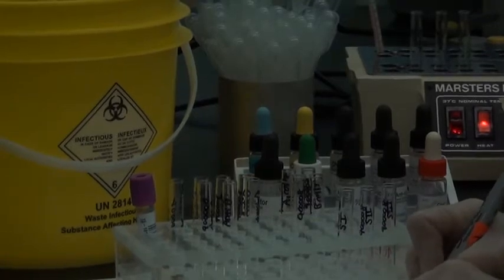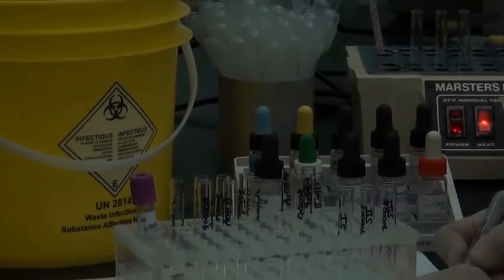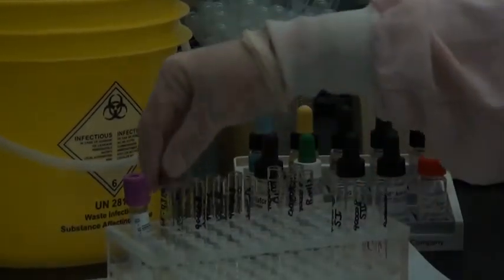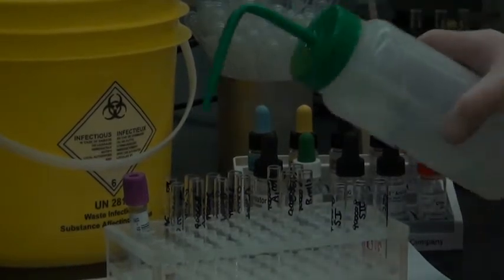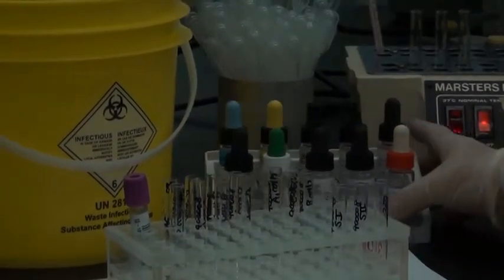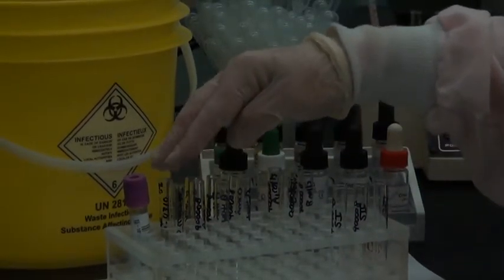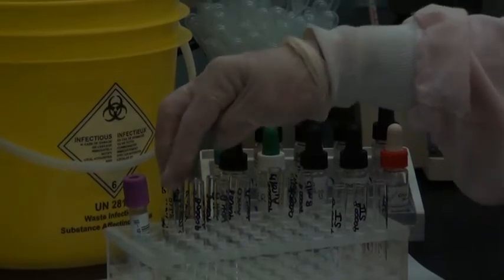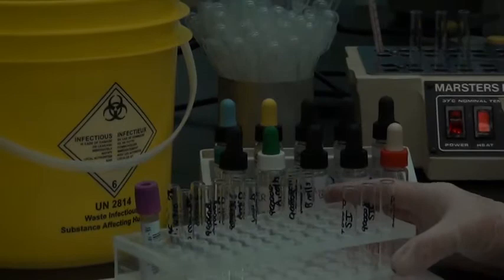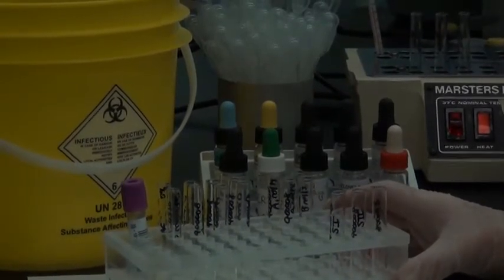And we always make 2 5%s when we do a type and screen, 1 5% for one group and 1 5% for the other group. We'll fill those each 1/3 full with saline. And we're going to make quick 5%s. We're not going to wash them this time. When you work in the SAIT lab, Danelle will let you know, I will let you know when we're going to move to that time-saving technique. If I don't specify, just do 3 washes and then prepare your 5%.